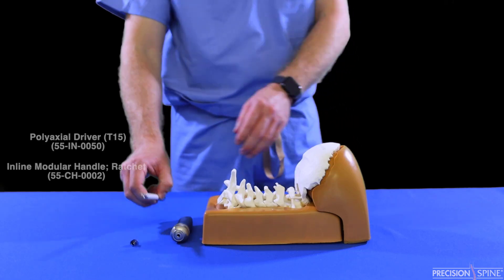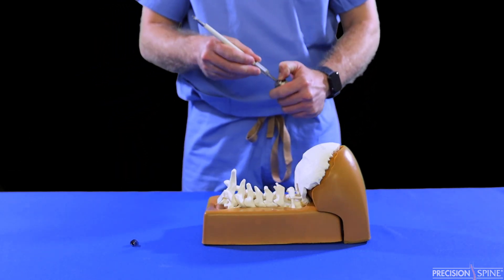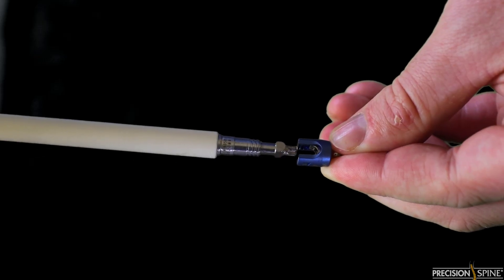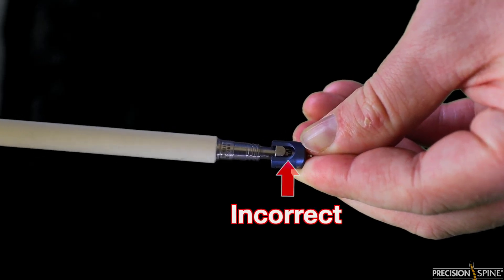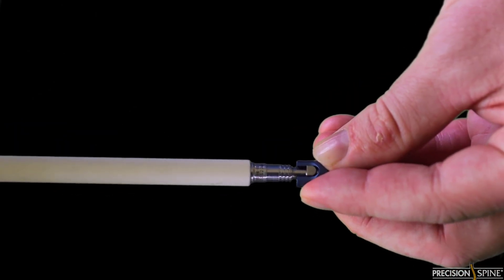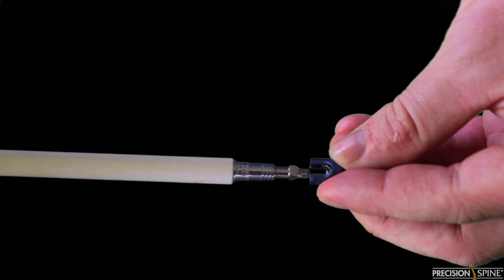Assemble the preferred size and length of polyaxial screw to the polyaxial screwdriver. This is done by placing the hexalobular fitting into the head of the screw and screwing the outer sleeve of the driver into the tulip.